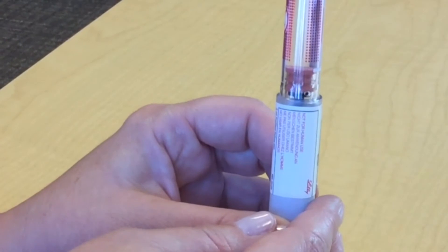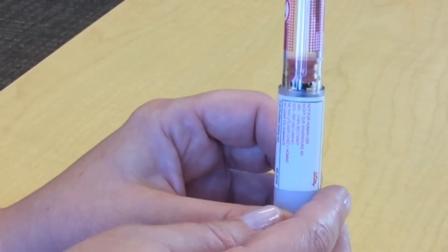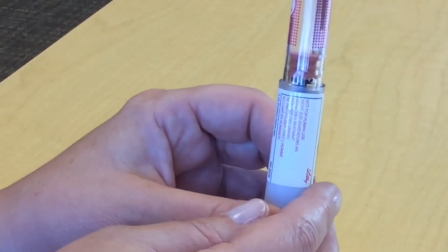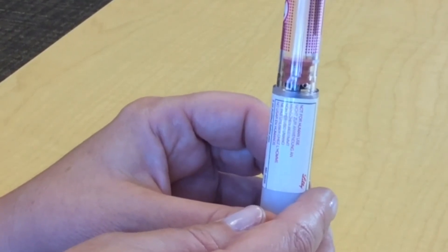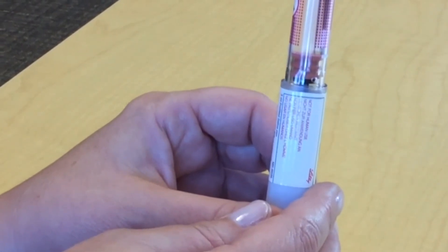If it is not evenly cloudy or you see something floating in your insulin pen, throw it out and get a new pen. No matter what type of pen you are using, you should not see anything solid floating in your insulin. Always throw out your pen and get a new one if you see this happening.